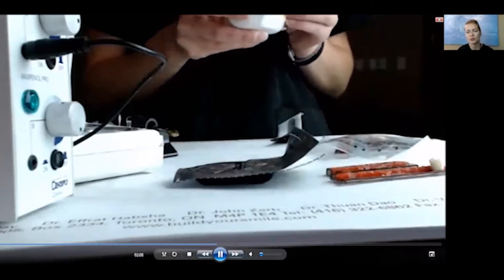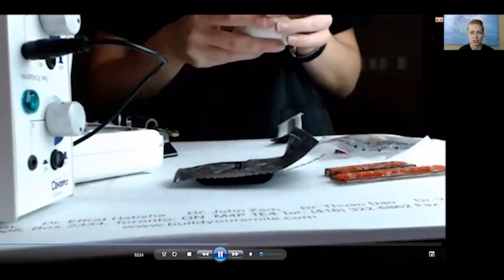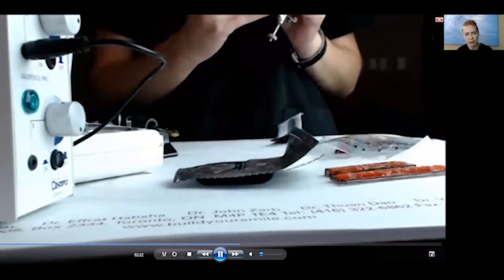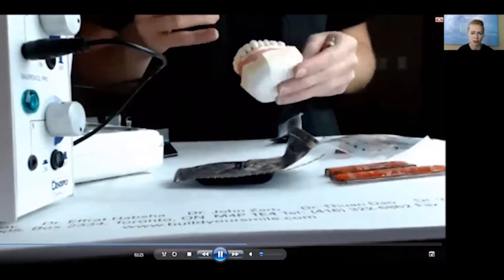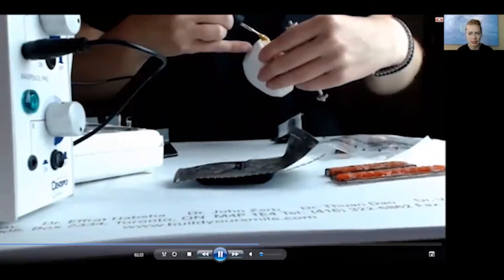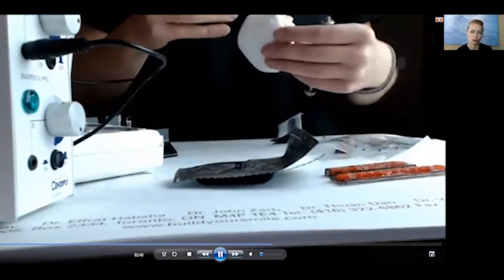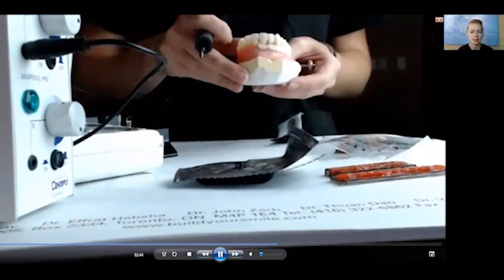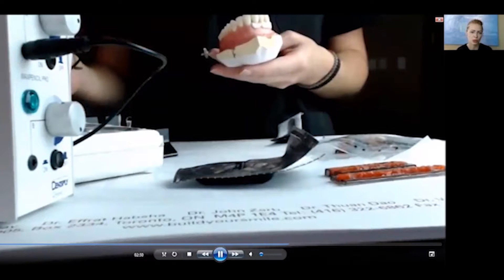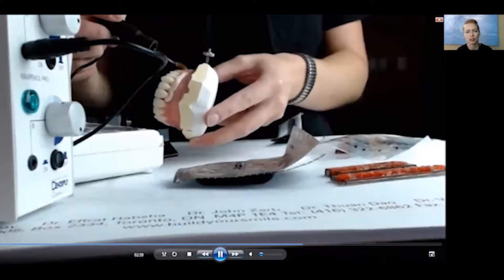The teeth are set up — again, you melt the material underneath in order to set up the teeth. The teeth have been pre-bonded with a special bonding agent that allows what is essentially a chemical bond between the acrylic teeth and the composite resin of the denture-base material. Melting it in not only fills any spaces but also melts the top layer of material so I can add the second step of the process — the contour resin. Setup resin was formulated to hold the teeth in place, while contour resin is more polishable and aesthetic.